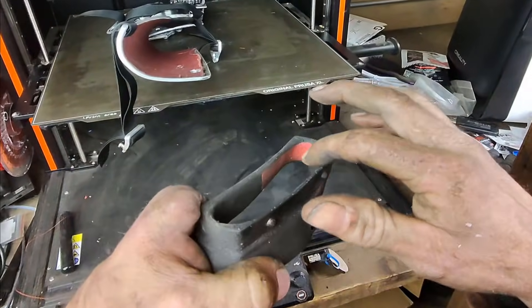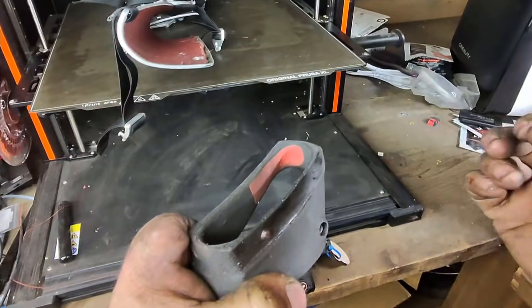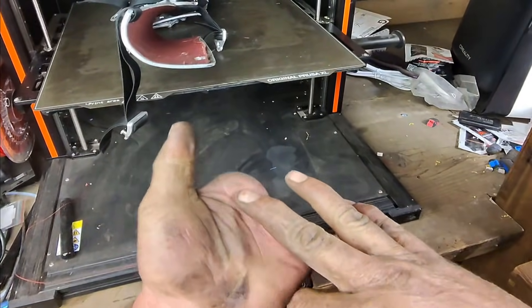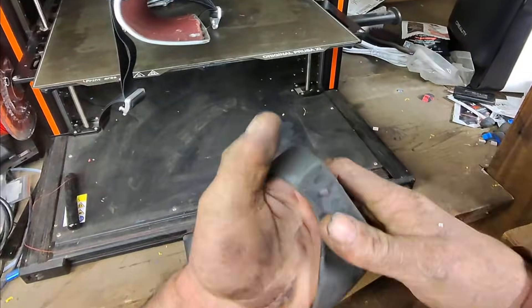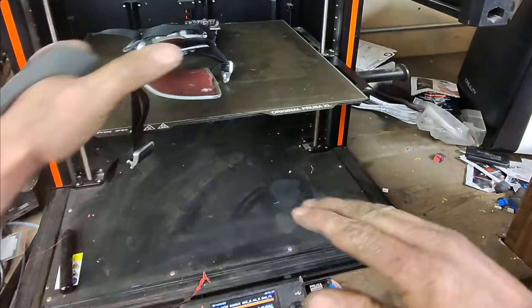This little area right here is the softer zone. Originally I was getting a little bit of a bitey sensation on this spot. What this socket allows me to do is lock behind the head of the metacarpal.